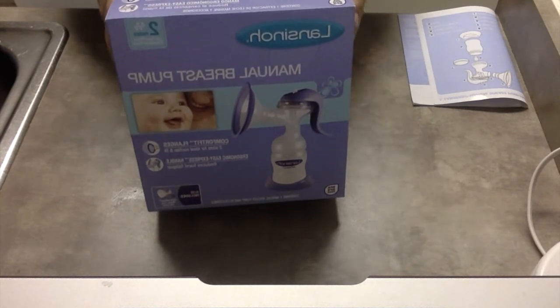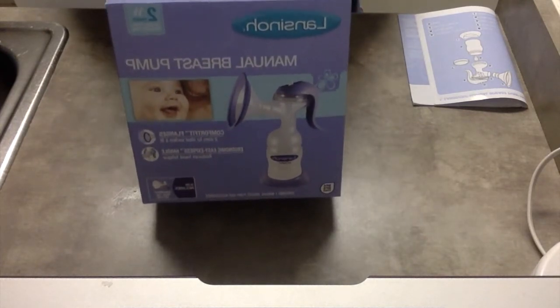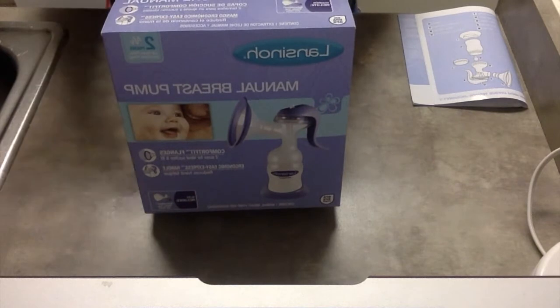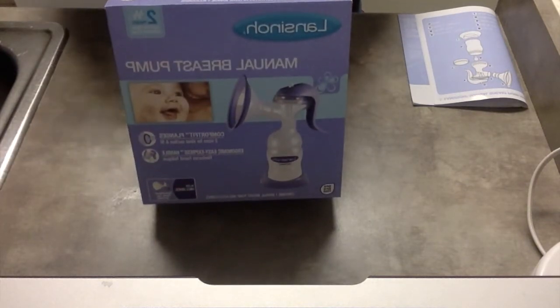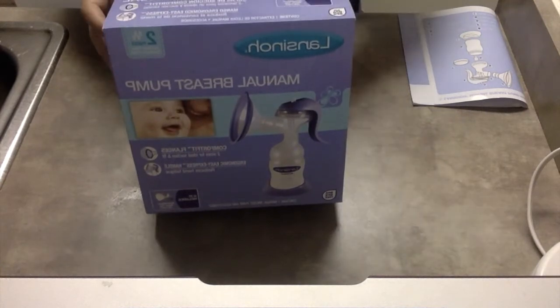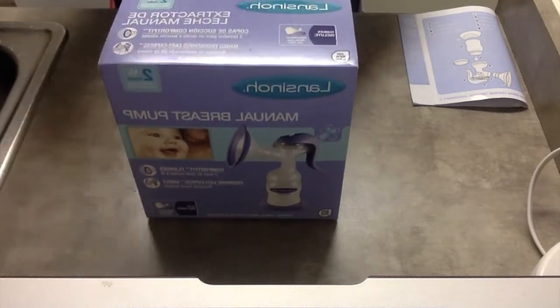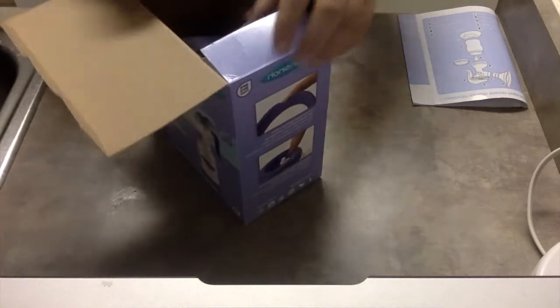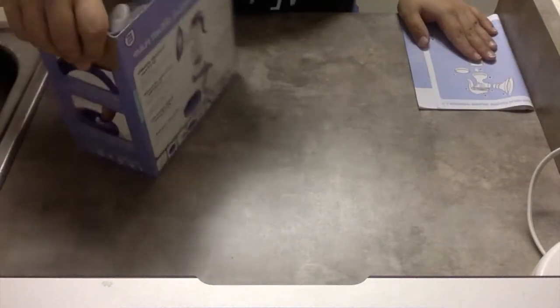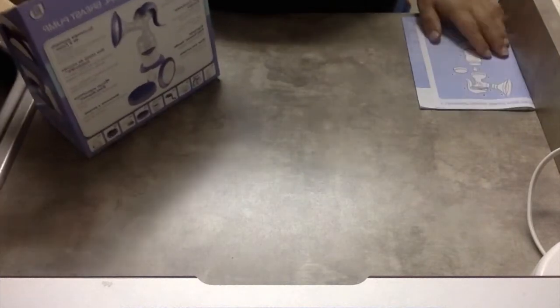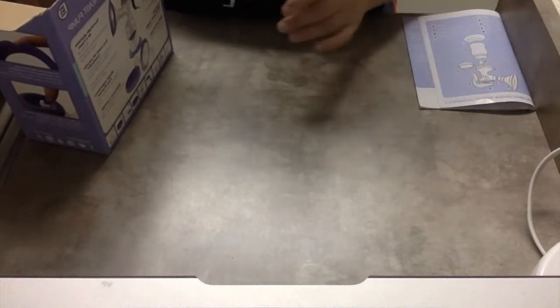This is just a single pump in here. I have it packed away. I haven't used it in a couple of months but I do like to have it handy just in case I need to use this for whatever reason. I'm just going to go ahead and unbox it and show you all the pieces. I have the manual here just so I can try to refer to the pieces by their technical terms.